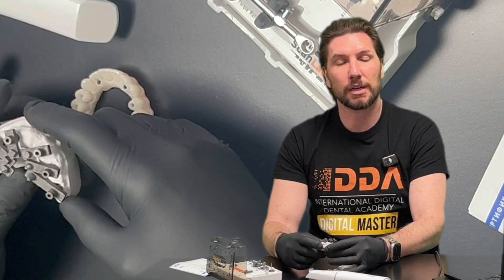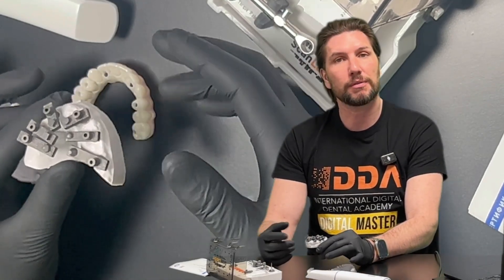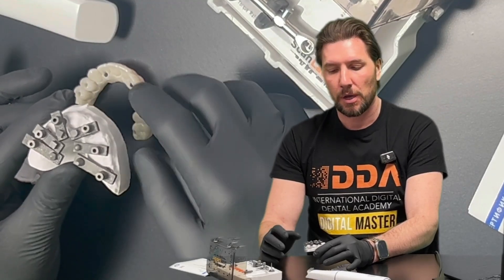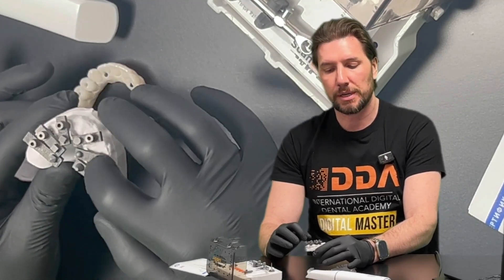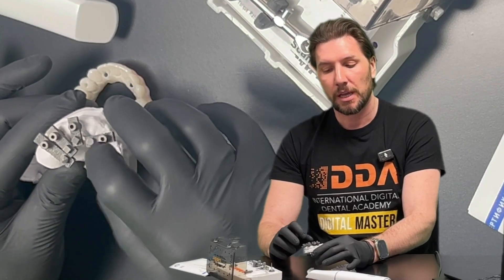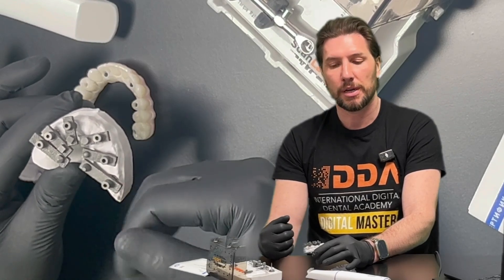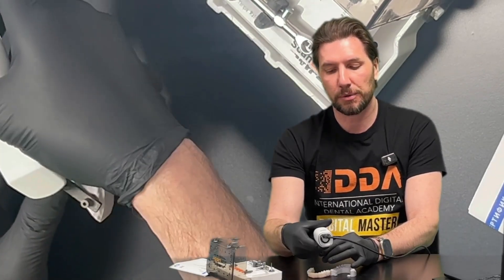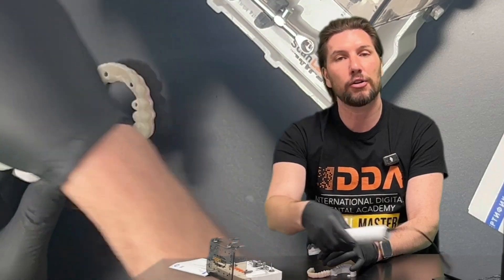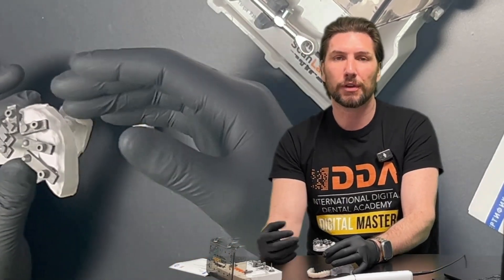Let's discuss some tips and recommendations for using ScanLadder in practice. The first recommendation is about the placement of the ScanLadders themselves. Looking at this model, the way we've orientated each one, we've positioned them to be centrally focused. If the scan bodies are directed too much away from each other, then more frames have to be used when scanning — a bigger area to cover — which is counterproductive to the philosophy of positioning them in a centrally focused way.